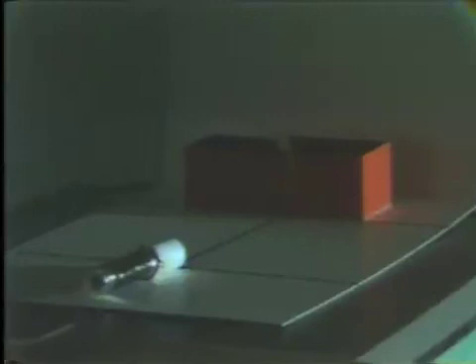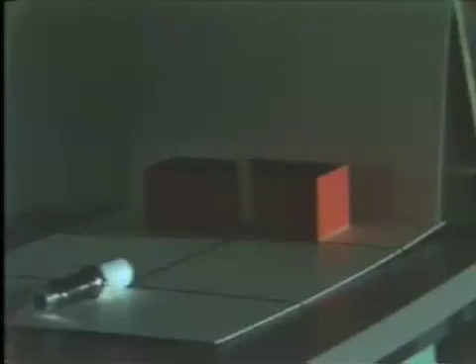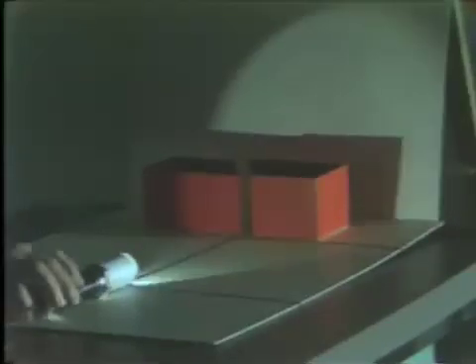Now x-rays and sight both travel in straight lines. Now if we move our viewpoint over, we will finally reach a point of view which enables us to see through the contacts. Now if I direct the x-ray beam in the same direction that we are now looking, the x-rays also will see through the contact. And so that is how the sighting method is executed — simply find a direction that allows you to see through the contact and then project the x-ray beam in the same direction you are looking.